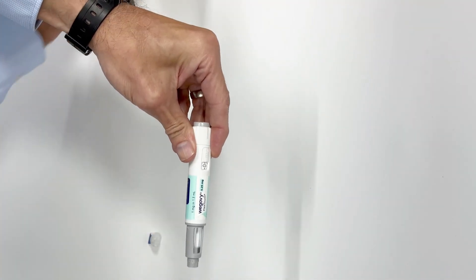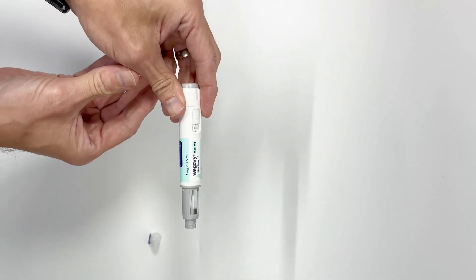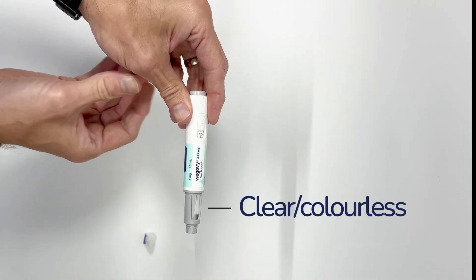Pull the pen cap off. Look through the pen window and check the solution is clear and colorless. Do not use the pen if Wegovy is cloudy or colored.